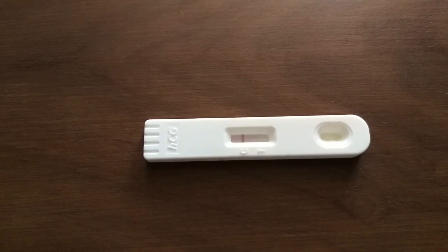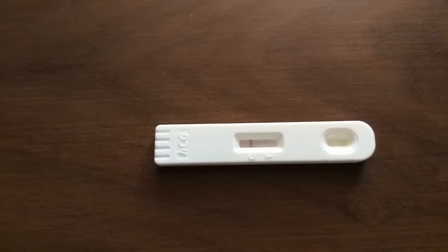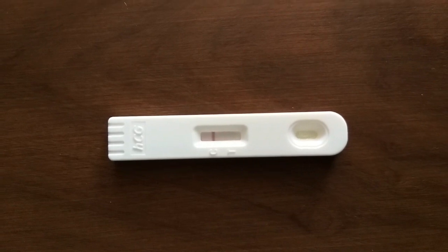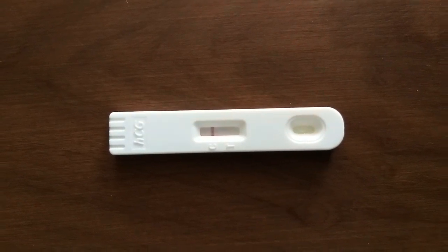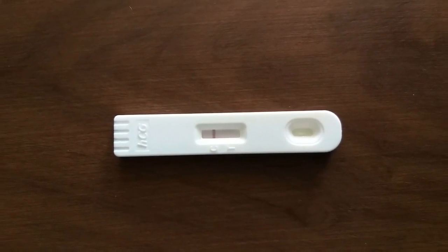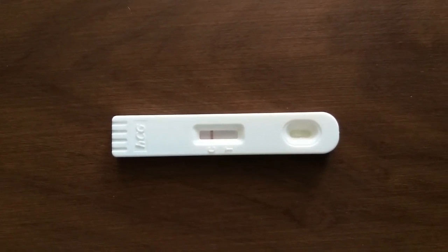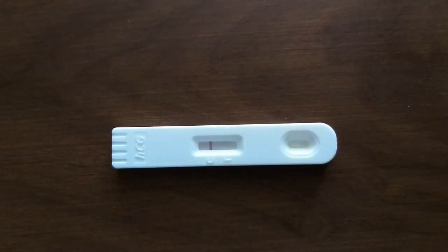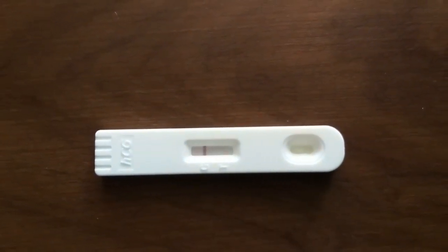This test measures the HCG level in urine. HCG stands for human chorionic gonadotropin hormone. HCG in urine shows positive results after 7 to 10 days of conception.